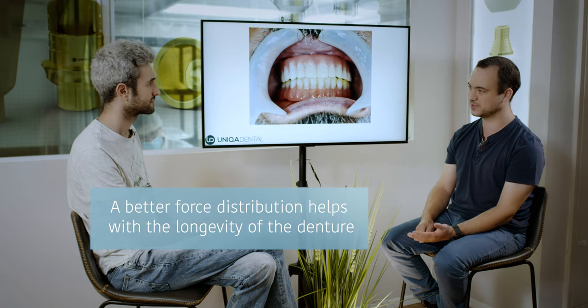If you use four implants you have four spots, so the forces are distributed and smaller at each point. With only two implants the force per spot would be twice as high. In these cases, many times there is no metal substructure for the denture — you have only small dots where all the pressure is applied and the entire denture is PMMA, plastic, acrylic — so it has a high chance of breaking. When you do the work on a bar, the basis of the overdenture is a metal base, so it has much less chance of breaking because it's supported by a metal carcass. On the metal you have all the plastic and acrylic, so the forces spread. You spread the force and it lasts much longer in the patient's mouth.